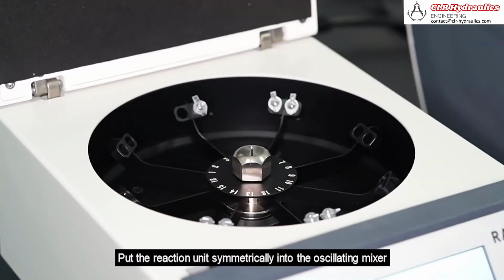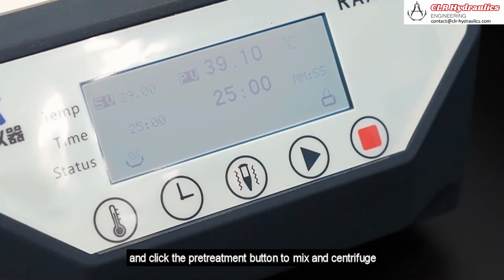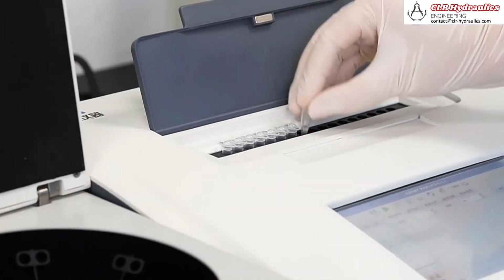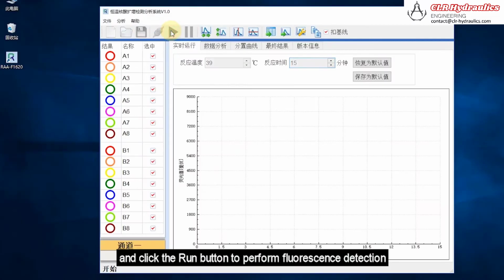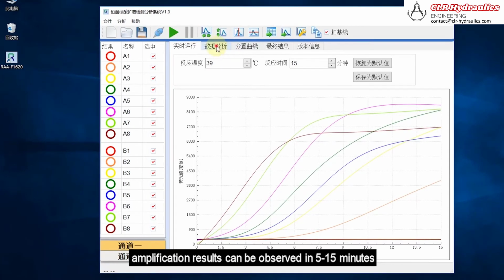Put the reaction unit symmetrically into the oscillating mixer, and click the pre-treatment button to mix and centrifuge. Place the mixed reagent into the fluorescence detector, and click the Run button to perform the fluorescence detection. Real-time amplification curves as shown in the video. Amplification results can be observed in 5 to 15 minutes.